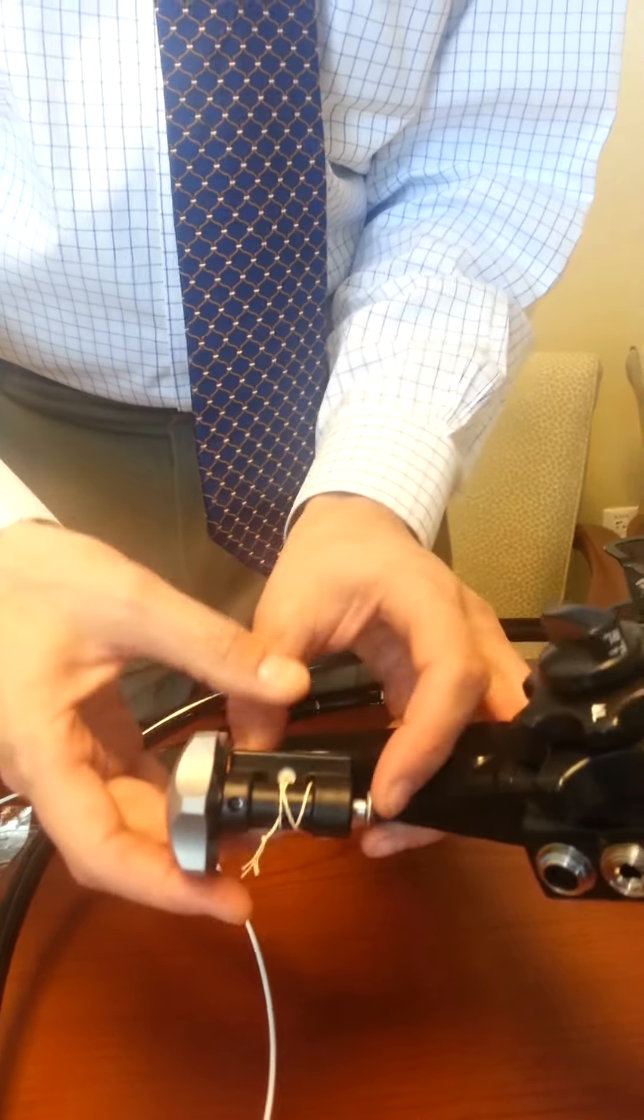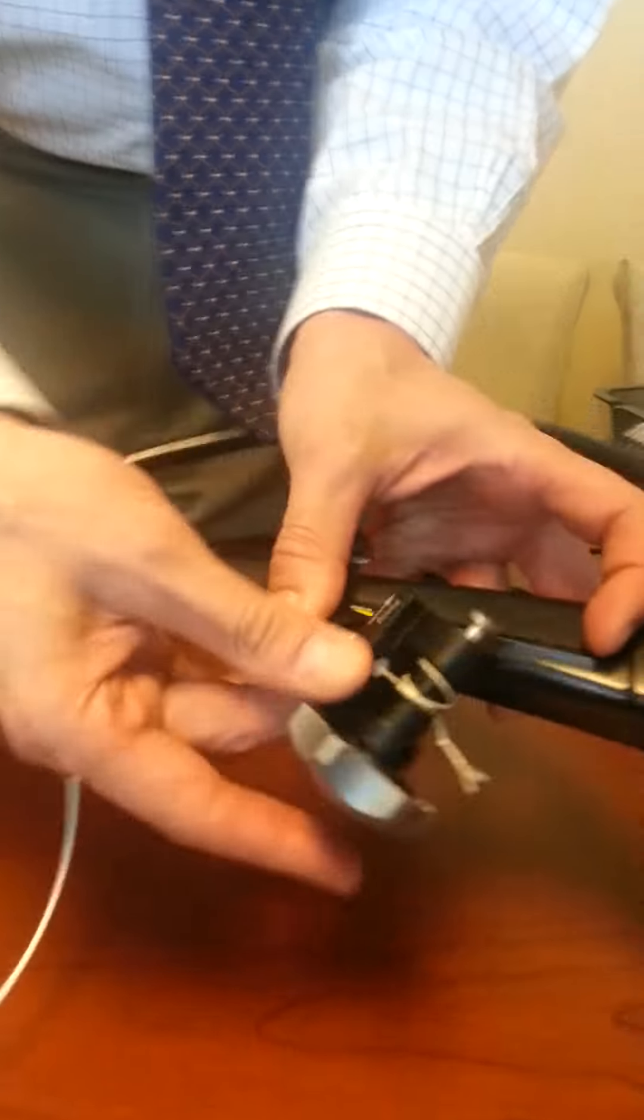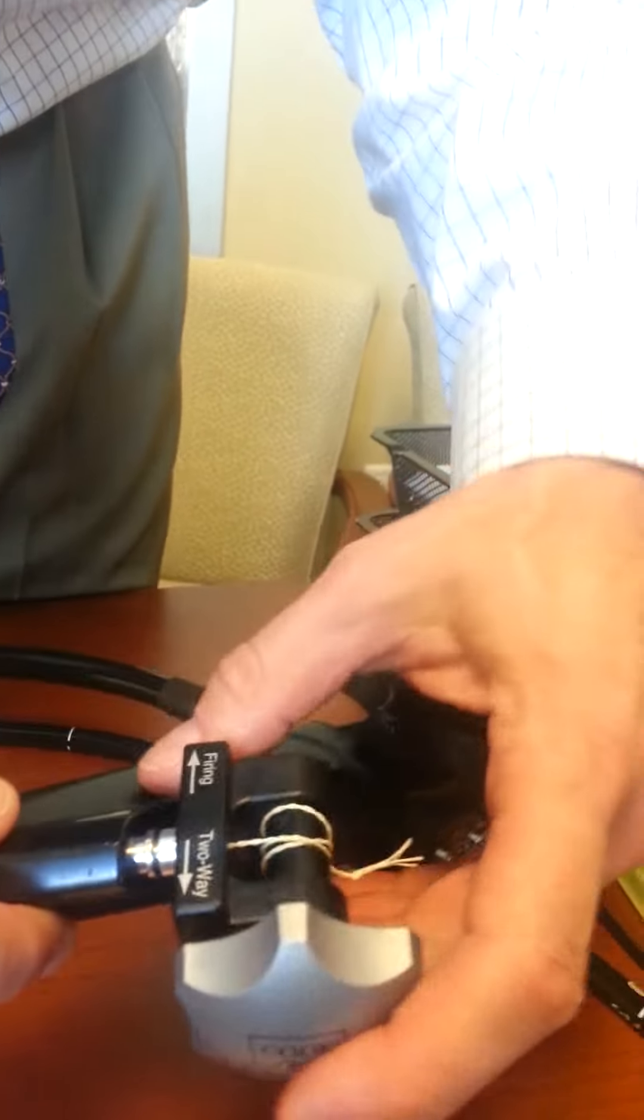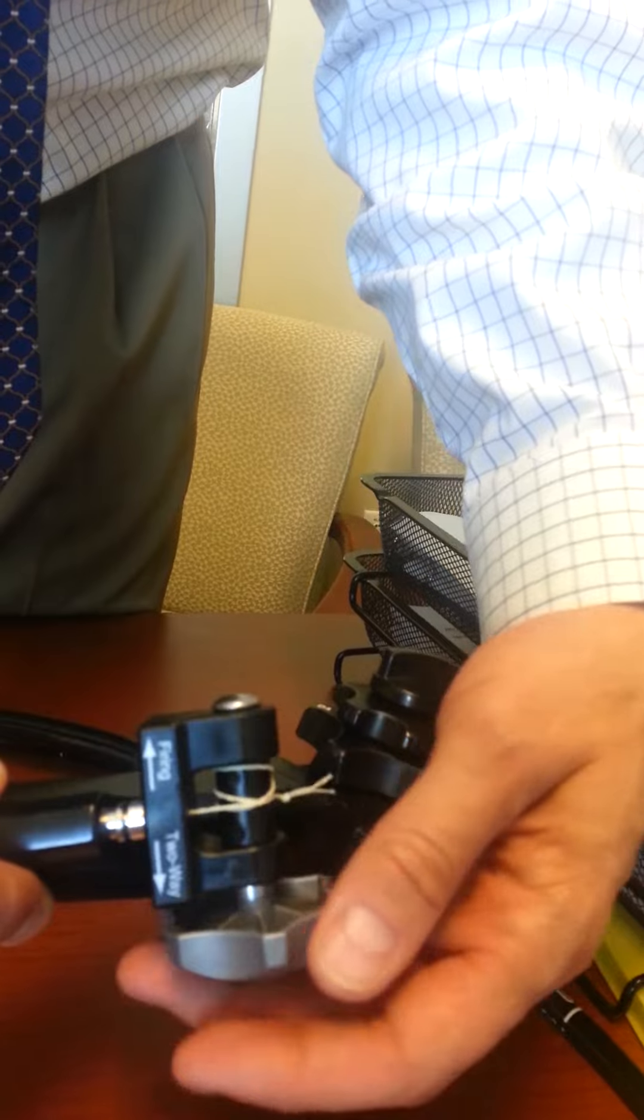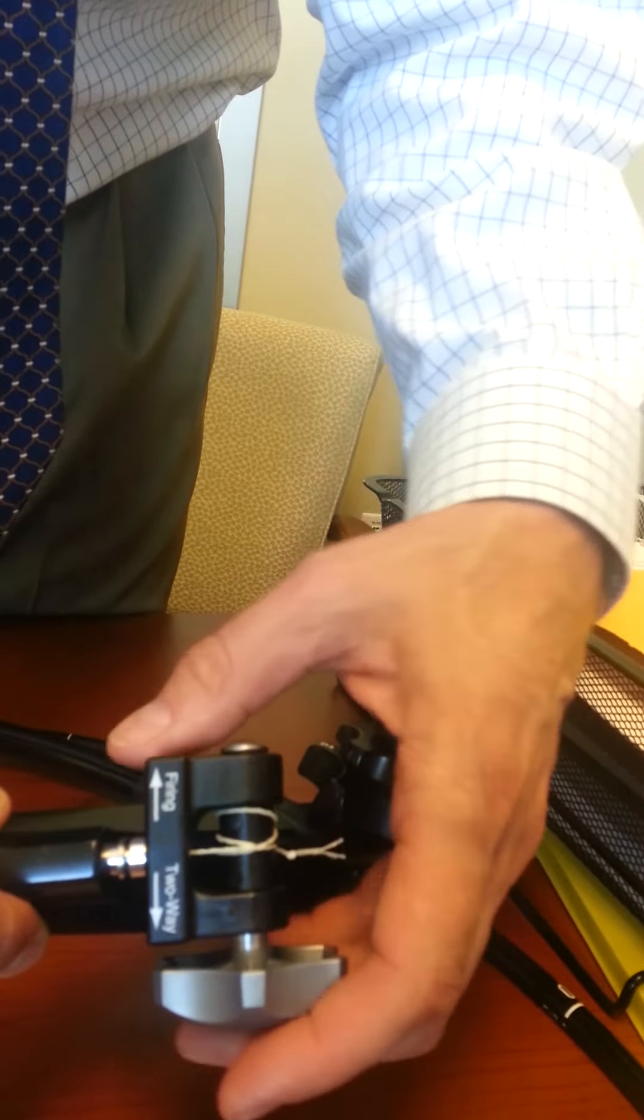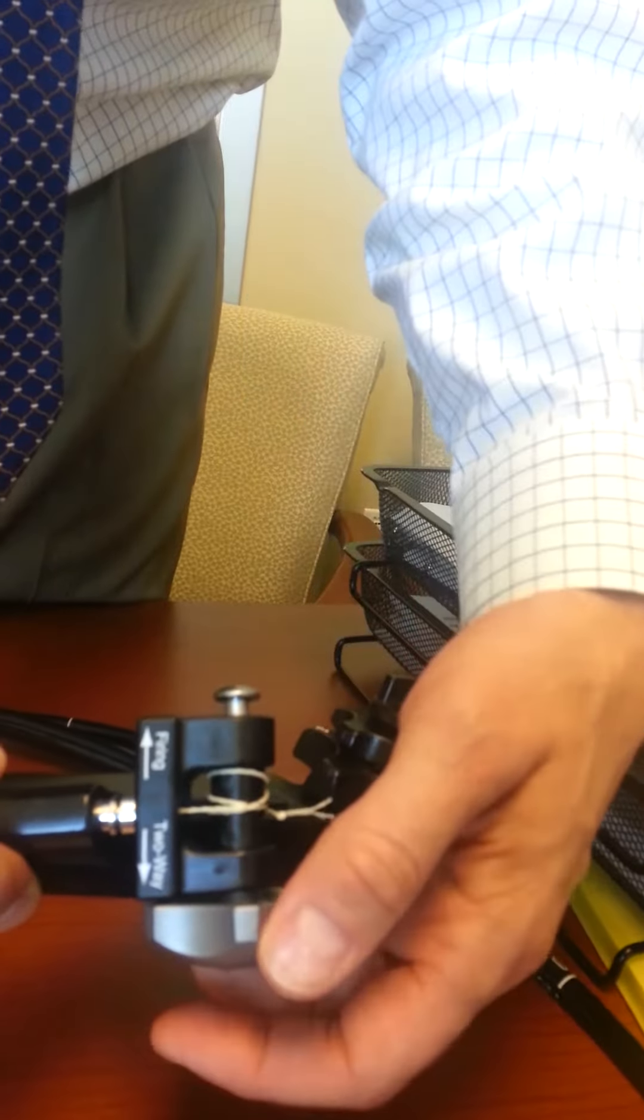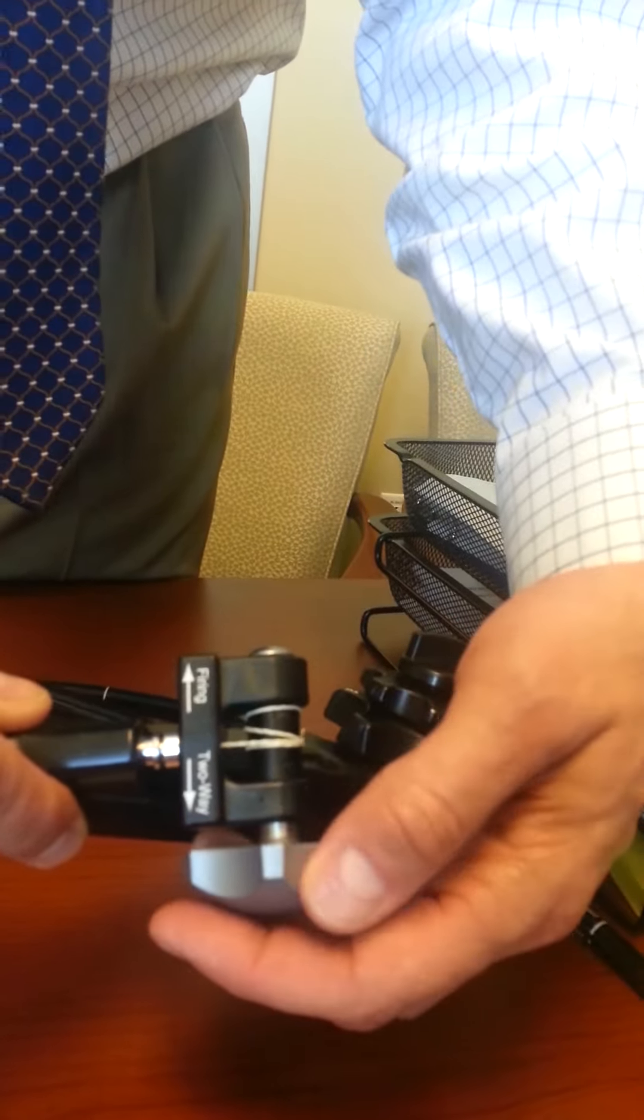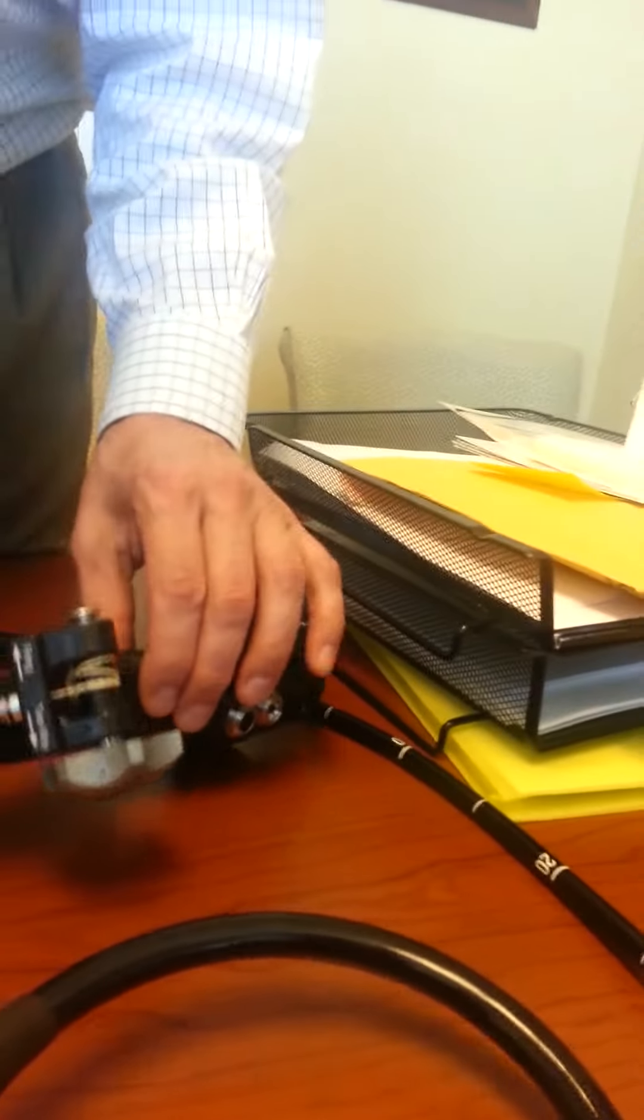There's also a lock on here, and you can see it says firing in two-way. This position will lock it, and then pushing that forward will open the spool up where you can actually band. We usually don't do that, but if you want to lock it with this slot out, it's in the locked position. Then this is fire, and it's just deploying the bands in the usual fashion. That's how you load the bander.